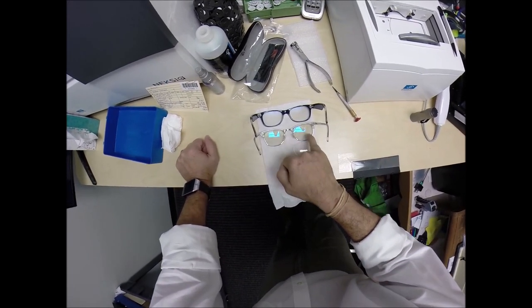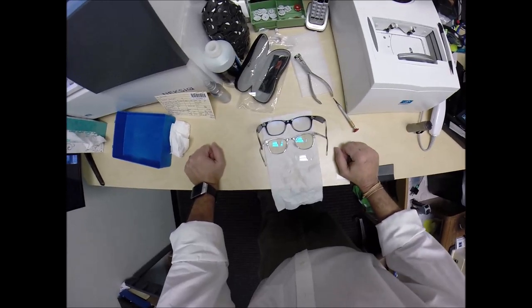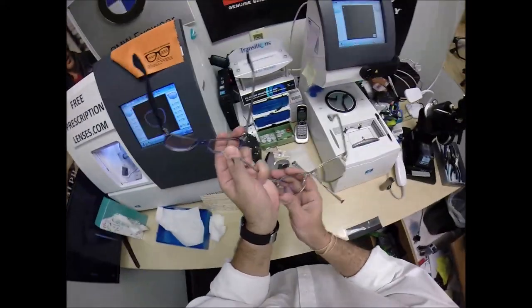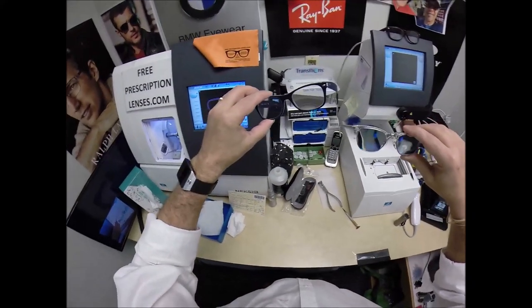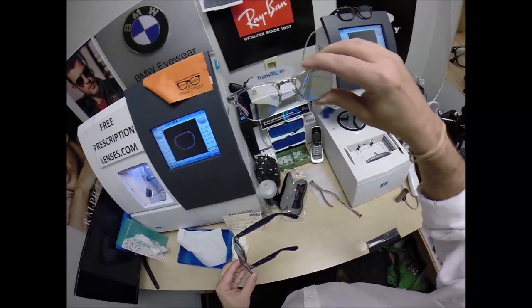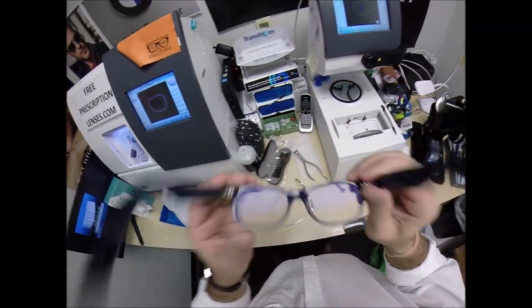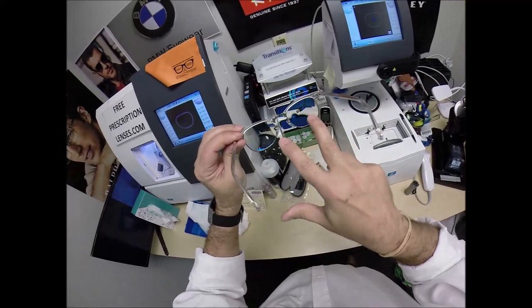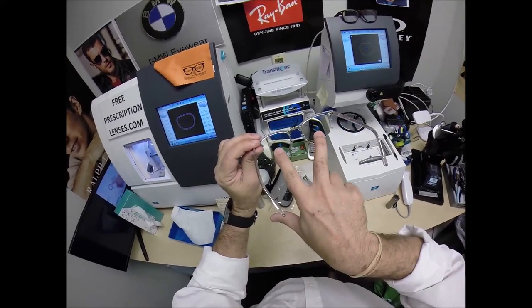My Transitions Signature 7 have 3% to 5% hue. The Transitions Extra Active have 5% to 7%. Transitions were the original blue light blocking lens. My Transitions Signature 7 block about 30% to 40% of the harmful blue light. Transitions Extra Active block 50% to 70% of the harmful blue light. You're not compromising anything with this mirror coating — it comes with its own back-surface anti-glare. So you have the blue-blocking ability of the Transitions Extra Active with the anti-glare coating and the mirror coating on the front.